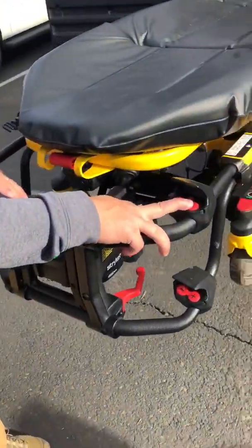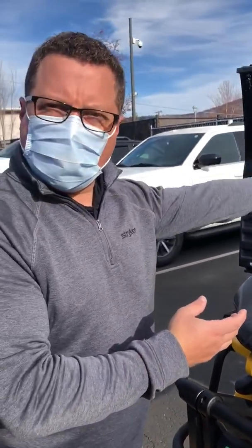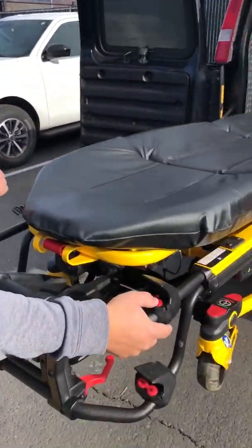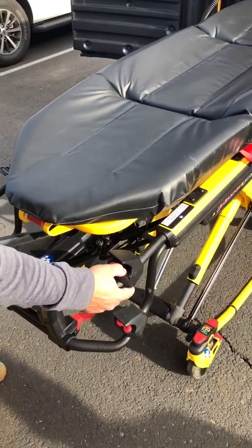At this point, we're going to expand the litter. When the litter is fully expanded, it has the patient's weight and will tell power load it's good to go. Power load will kick in. I give it a 1-1000 after I hear that pitch change before I let go of this button.